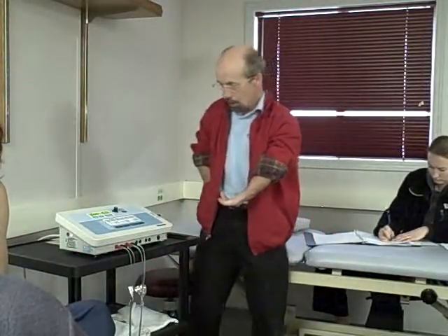High volt is probably, I would say, the second most popular waveform. It's a monophasic waveform. It's also known as pulse DC current. So some machines, the reason I tell you that, some machines will say mono, which is from monophasic, which its popular nomenclature is high volt. Did you say pulse?